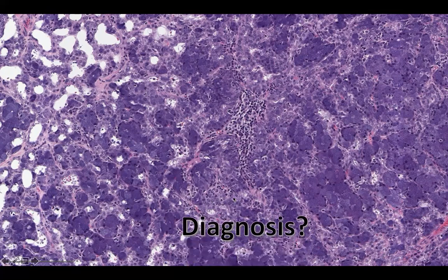So what is this? Acinic cell carcinoma. Nice, bro. Oh my God, you're coming for my job, aren't you? You're coming for my job. I don't want to recruit you anymore. I think you're going to replace me. Anyway, so yes, well done.